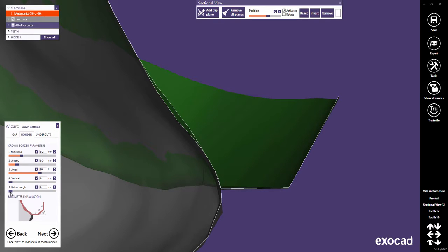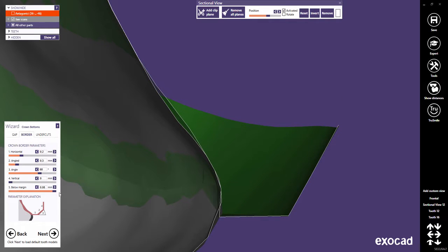Below Margin defines an absolute offset for all the drawn margin points in the insertion direction.